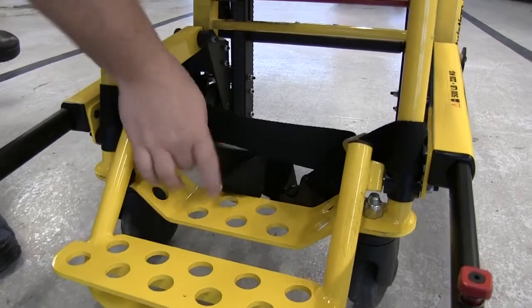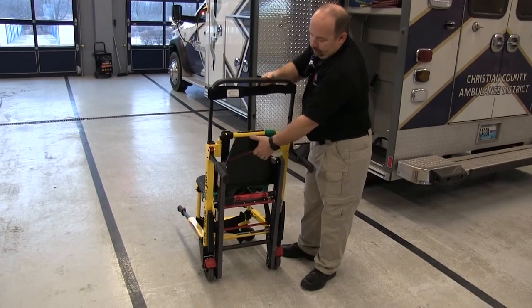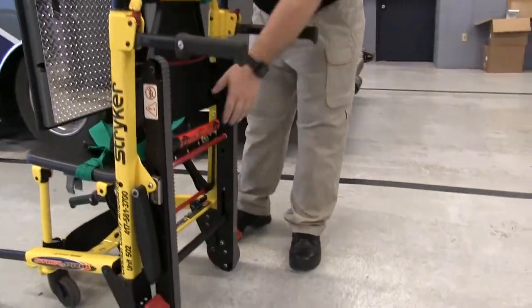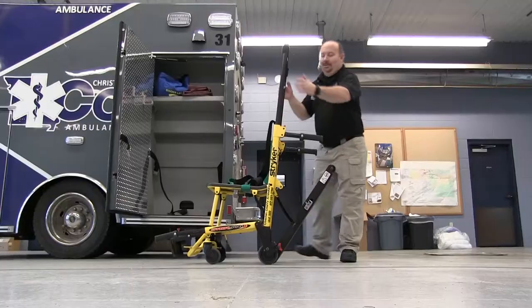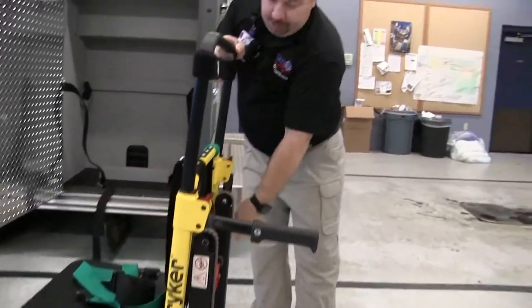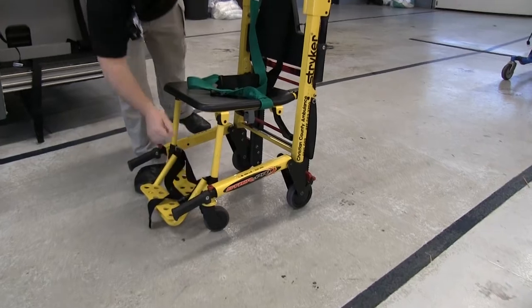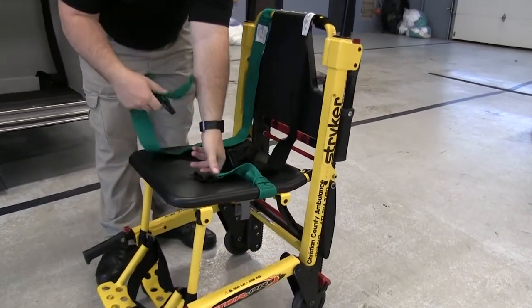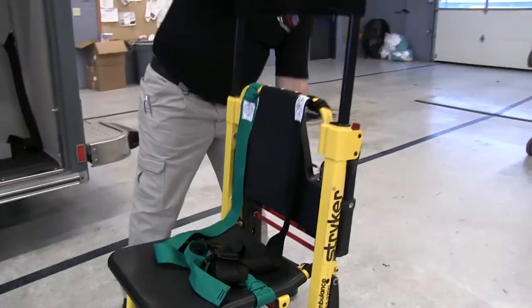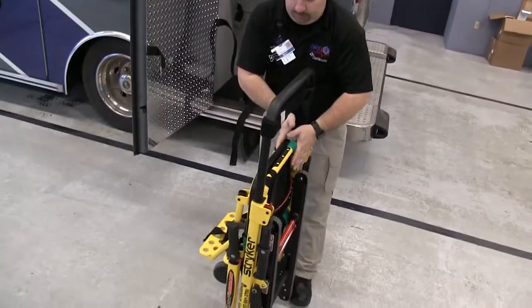There's also a patient step with a small strap to hold their feet in. For the operator, the control arm locks in different positions so it functions well for both short and taller people. The track assembly opens out easily and locks back, which gives it that easy glide down the stairs. It's very easily closed — arms down with those little red knobs — and criss-crossing the seat belts, with a convenient handle underneath for a really light-touch closure.